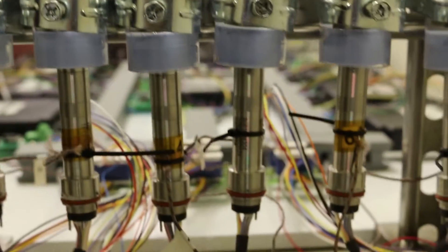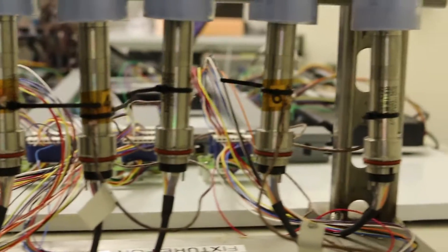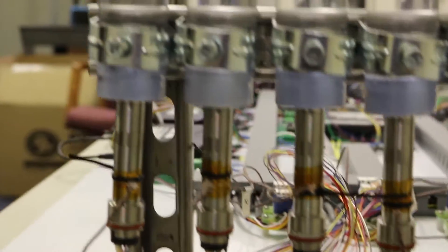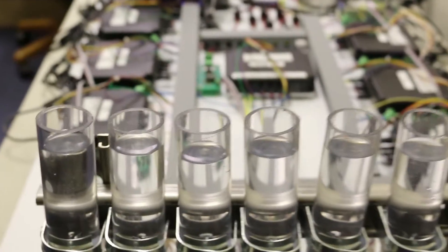Some examples of applications we serve and which could benefit from custom motor life testing are ENT shavers, orthopedic drills and saws, gastrointestinal staplers, and intraocular injectors.